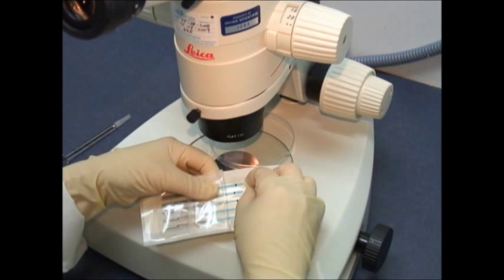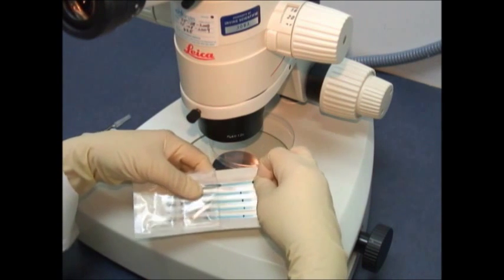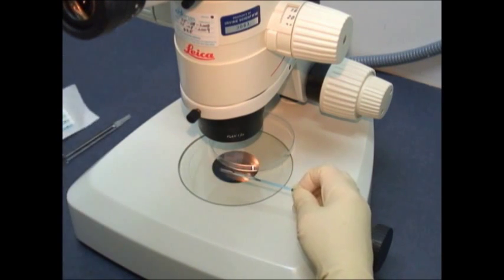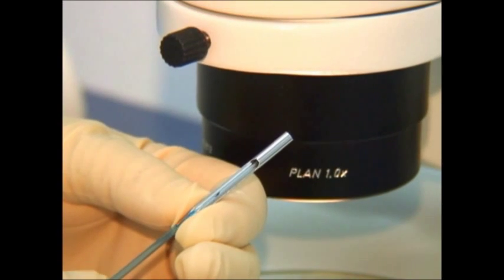Welcome to the Center for Reproductive Medicine and Robotic Surgery Laboratories. Here you will see the high-tech procedure of oocyte or eggs and blastocyte or embryos cryopreservation using the technique called vitrification.